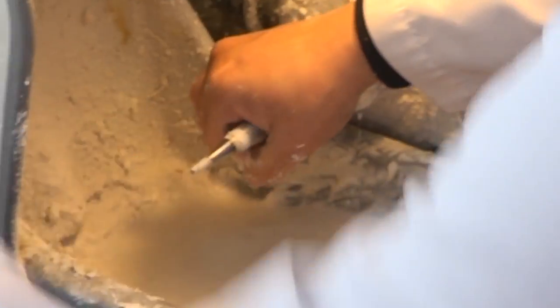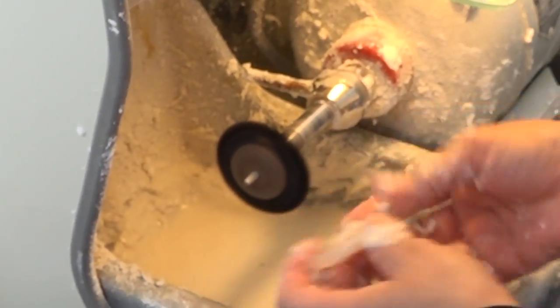Now change to a plastic hub. Polish the inside of the night guard.